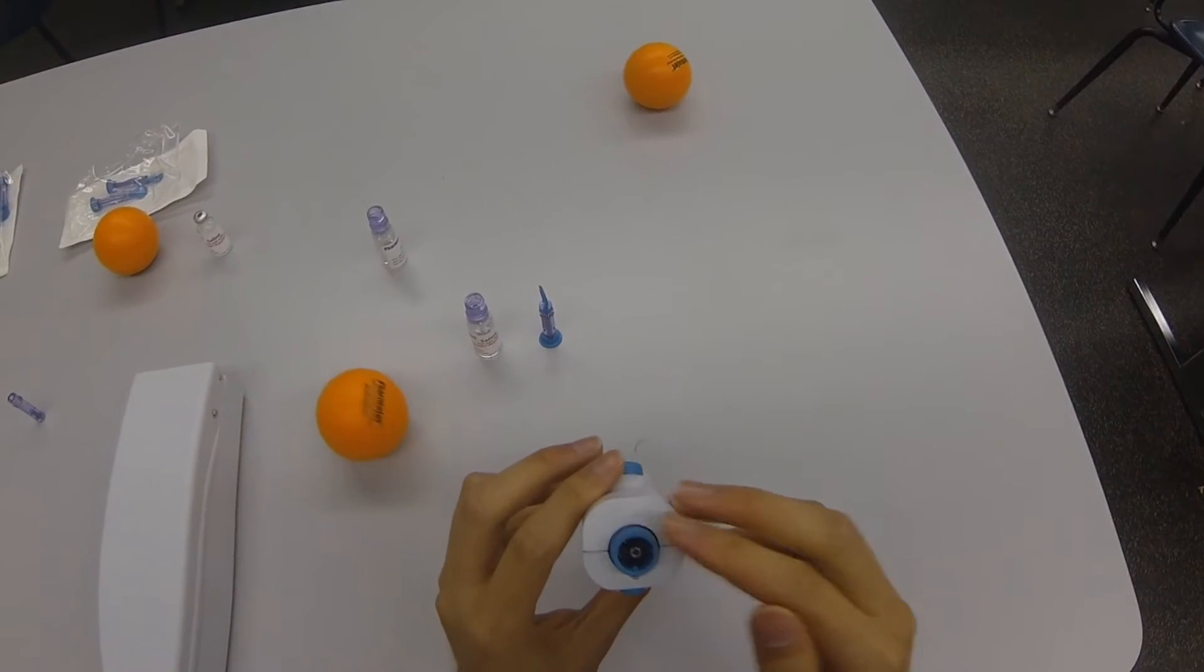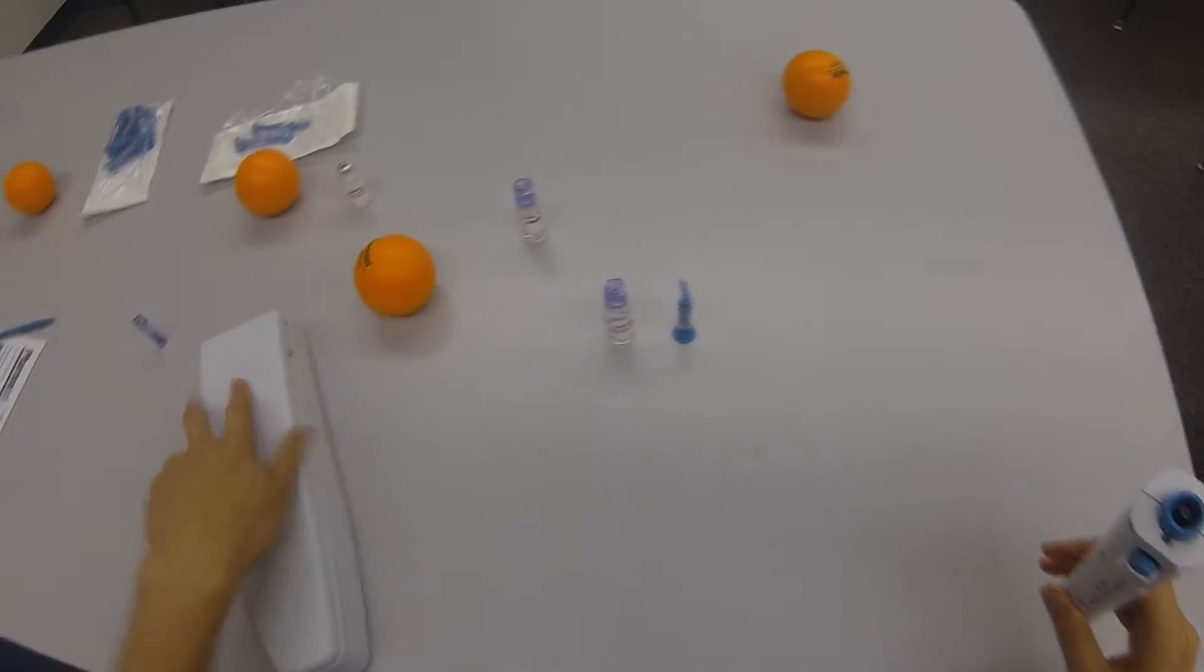To check whether the injector is charged, look inside the blue ring. If you see a small pin in the middle of the hole, that means you need to charge it.